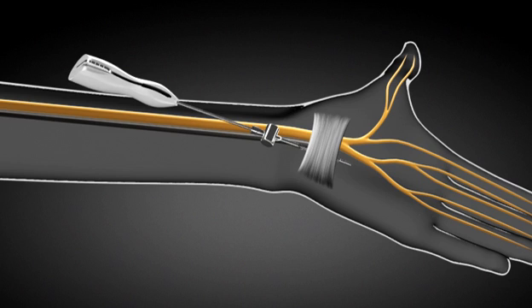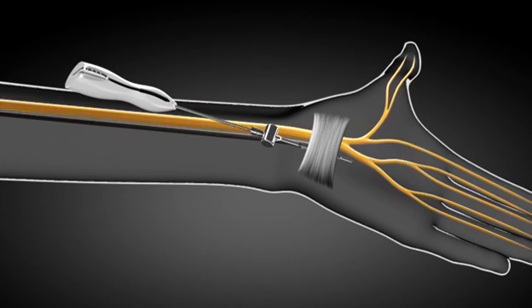If a nerve stimulator is connected to the Manos device, the distal tip of the device will provide nerve stimulation guidance.